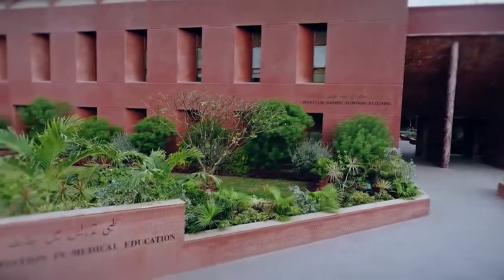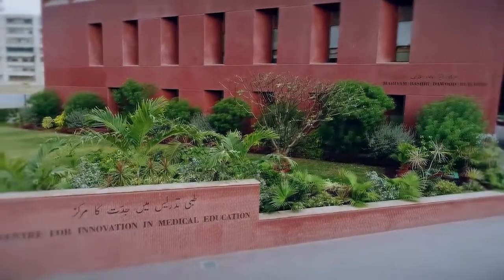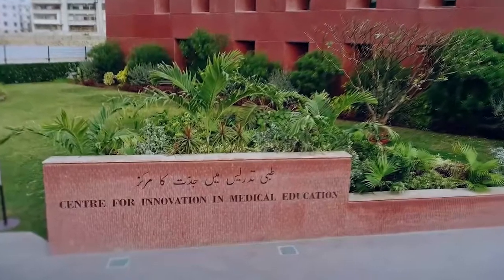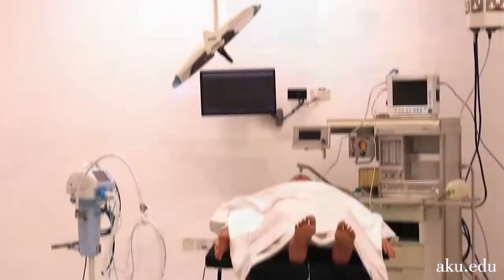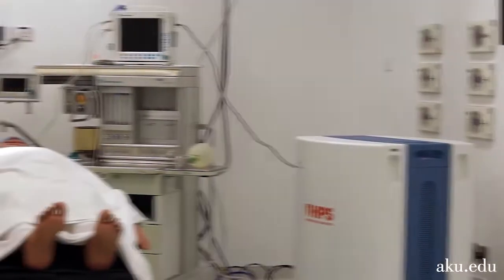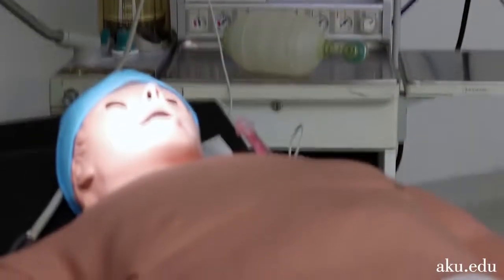Welcome to CIME, the Center for Innovation in Medical Education at the Aga Khan University. In this video, we will explore features of the Human Patient Simulator, often referred to as the HPS.